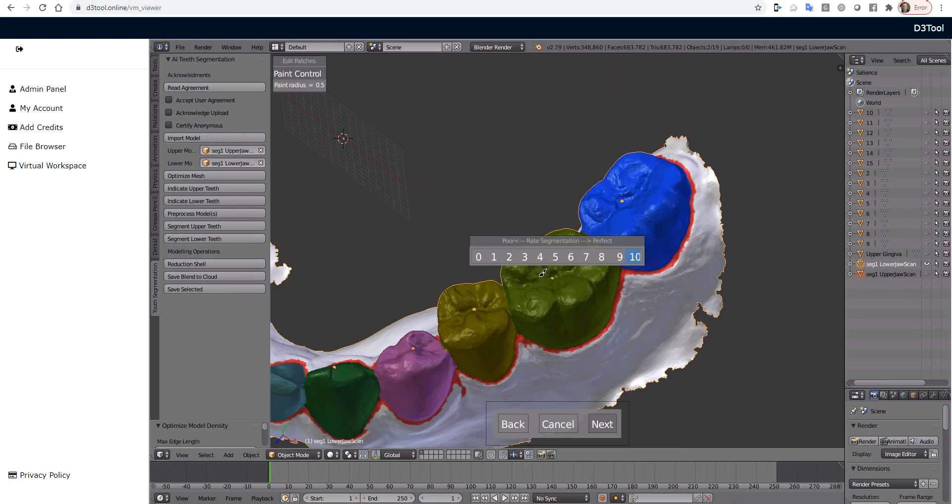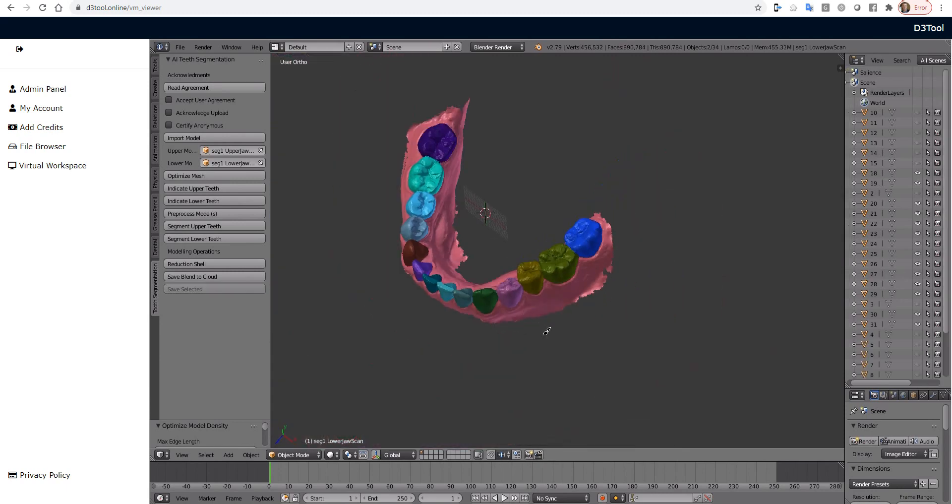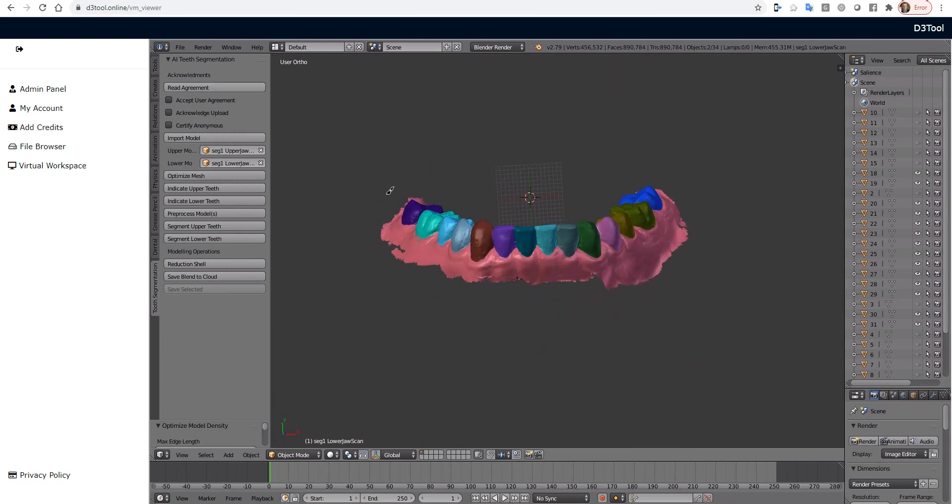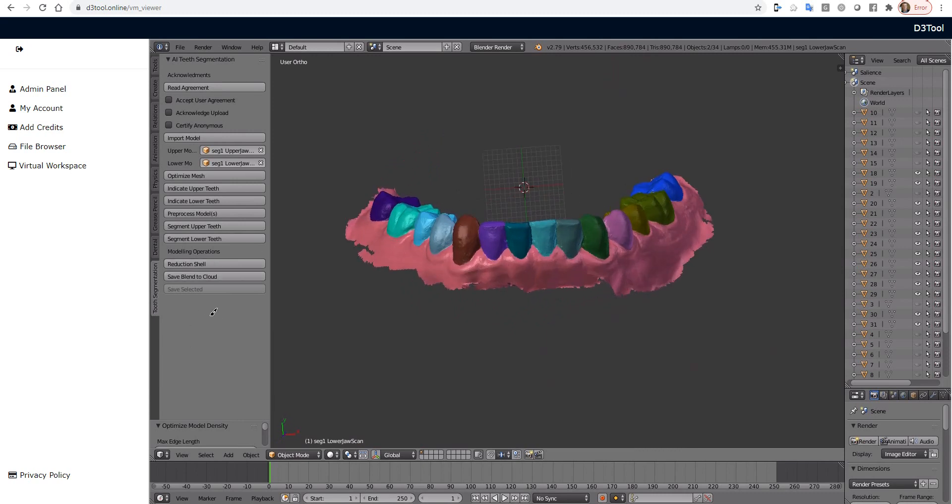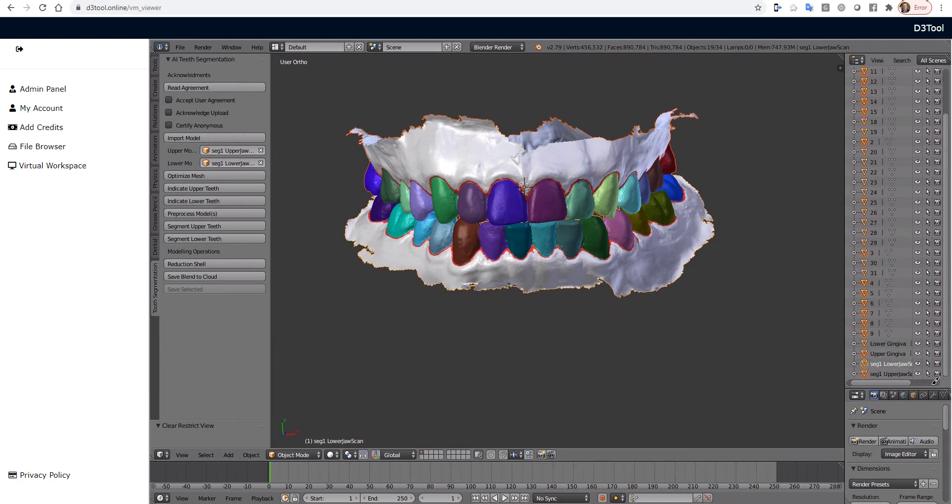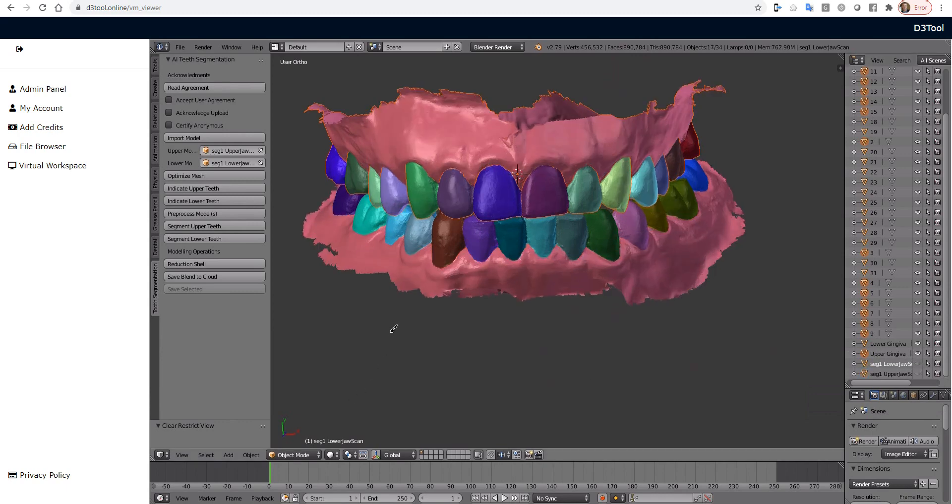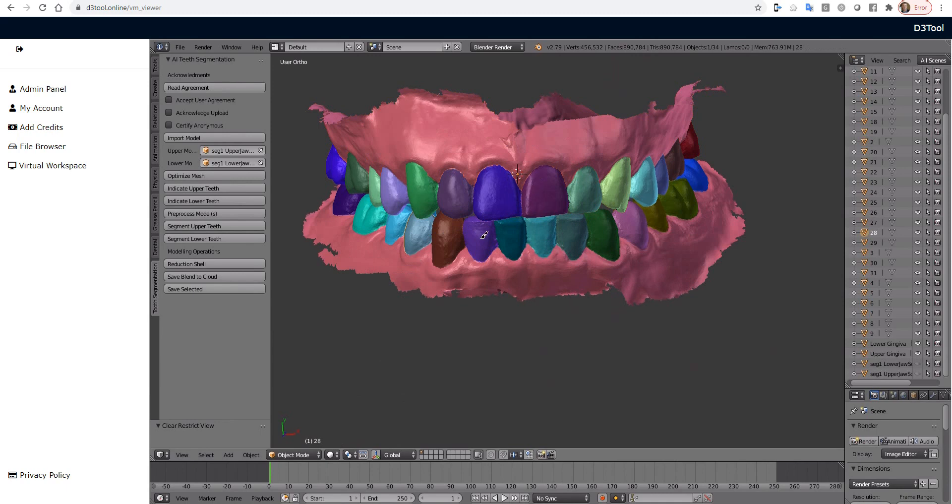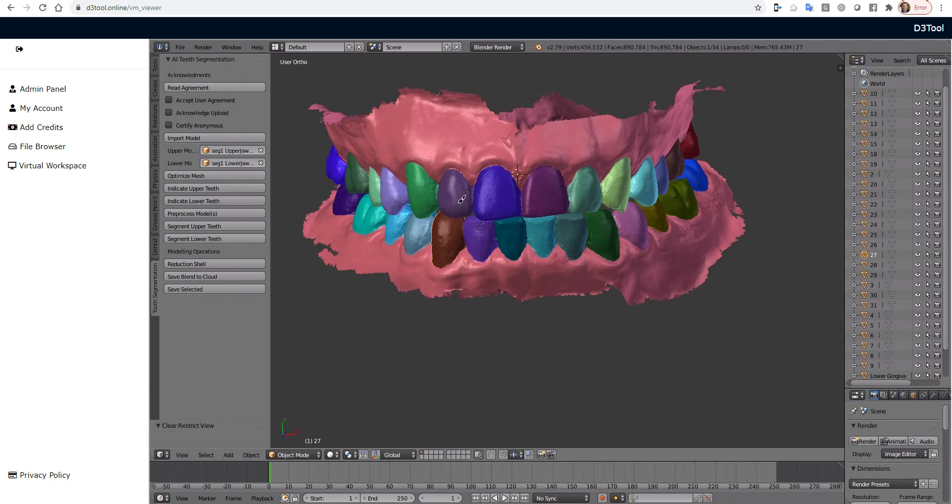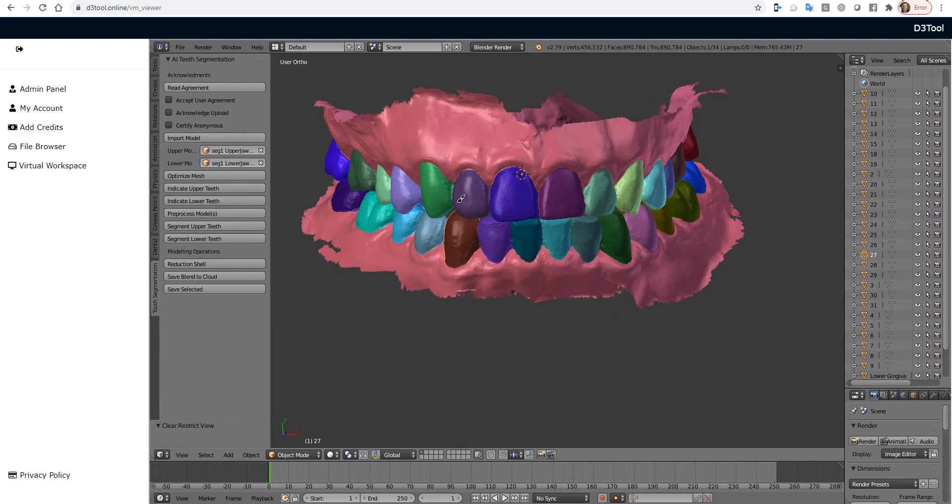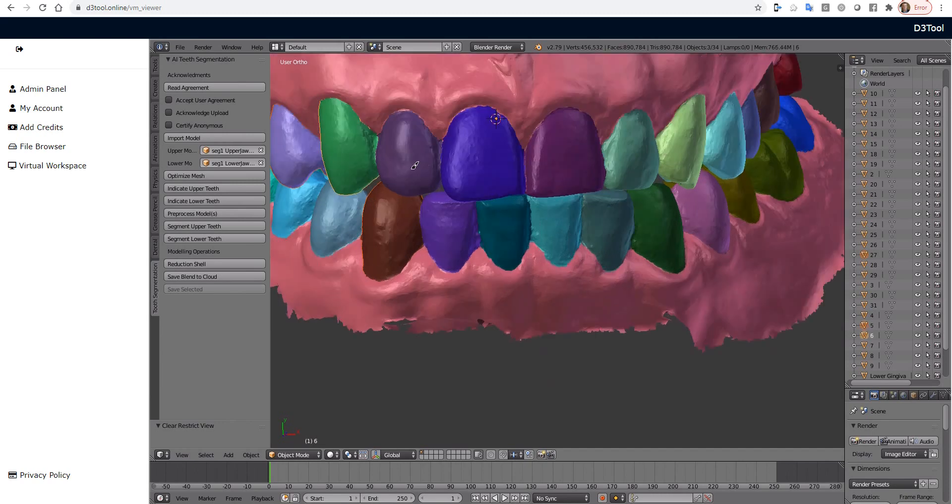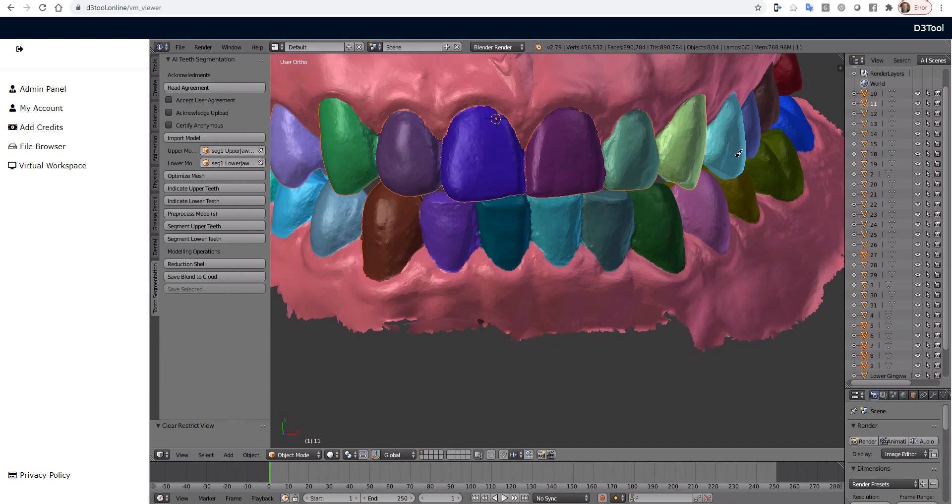Now we will get to the fun stuff. OK, so right now all the upper jaw teeth are hidden. So we will provide some view helper buttons to show the upper or lower teeth. But I'm going to press Alt H on my keyboard to unhide everything. And then I'm going to hide the original jaws. So now we can right click on any teeth in the scene. Or we can left click on them in the outliner, although at this point the outliner is pretty congested. So I'm going to click in the 3D view and hold Shift and right click to select multiple teeth. You can see this very faint outline around each tooth. And I'm going to do the bottom as well.